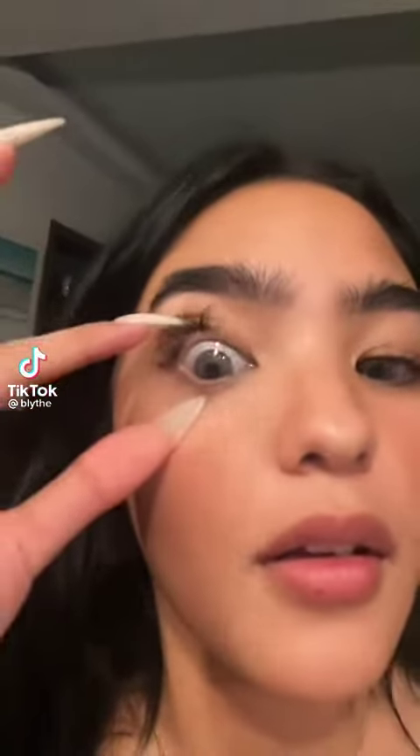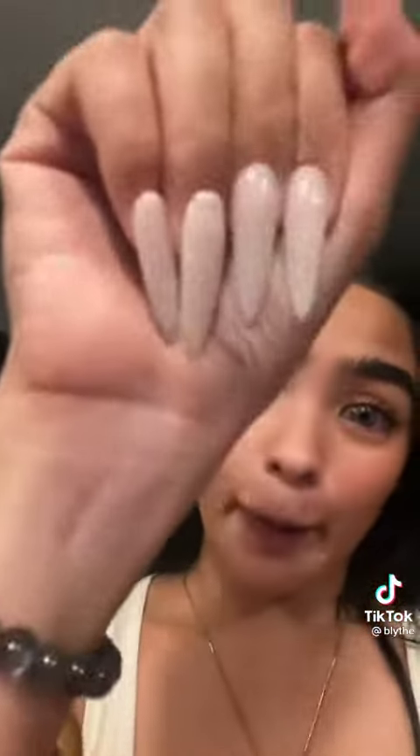So, how do I take off my contact lenses with my spiky nails? So, of course, I don't have to touch my eyes, right? I'm going to get the contacts — can you see that?